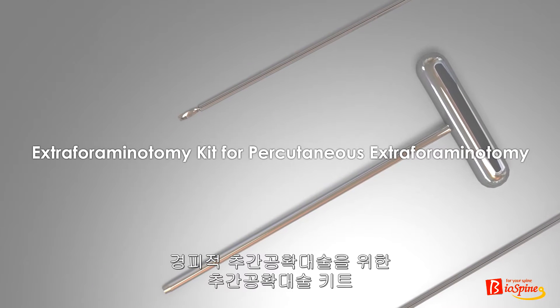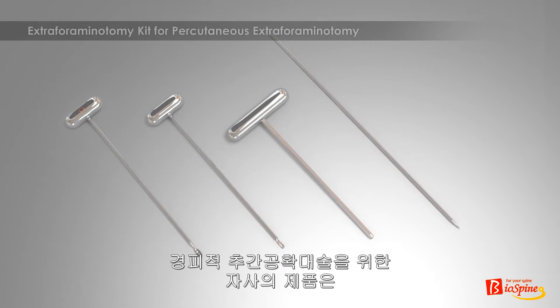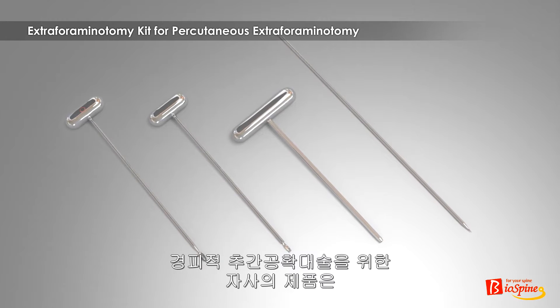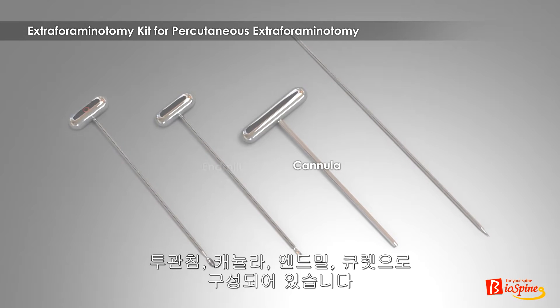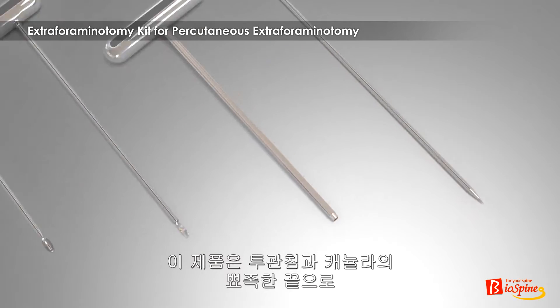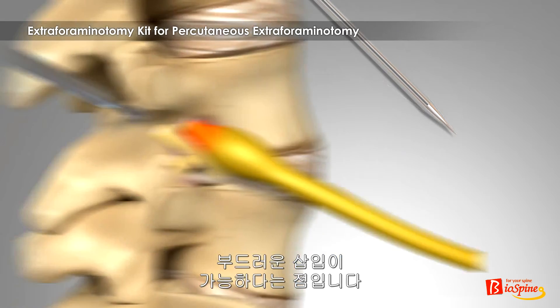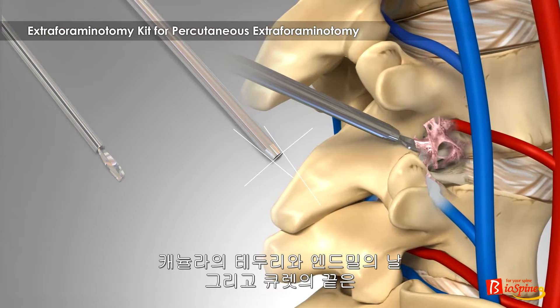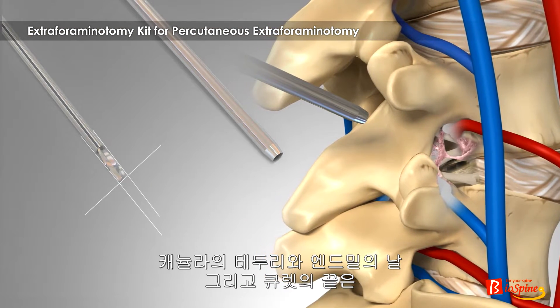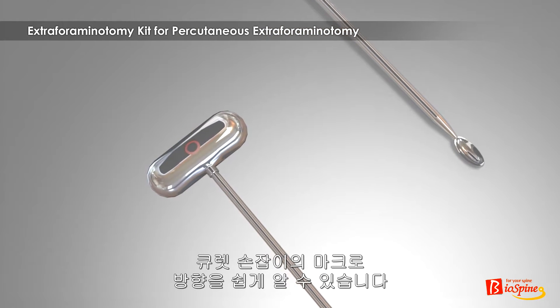Extraforaminotomy kit for percutaneous extraforaminotomy. Our company's product for percutaneous extraforaminotomy is the extraforaminotomy kit, which is made up of a trocar, cannula, endmill, and curette. This kit is characterized by smooth insertion by the tapering part of the trocar and cannula, minimal impairment of vital structures such as the DRG — dorsal root ganglion — vein, and artery by the blunt rim of the cannula, blunt blade of the endmill, and cup part of the curette, and easy recognition of direction by the mark on the handle of the curette.